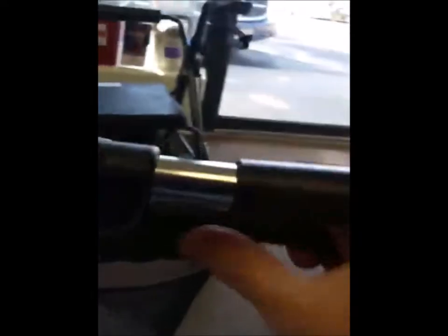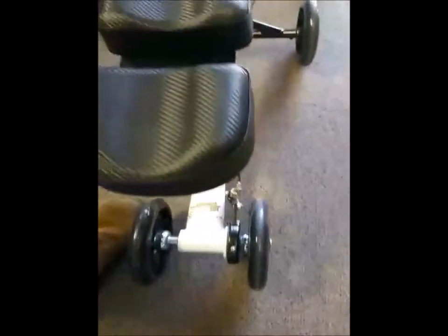On the front, these are steerable — you want to make sure you have enough slack in your cable to turn corners without locking the brakes. The brakes are able to lock by pushing down on the brake handle, which locks the back brakes so if I'm rolling this it's not going to move. It can still slide on gravel, but it will lock the brakes.